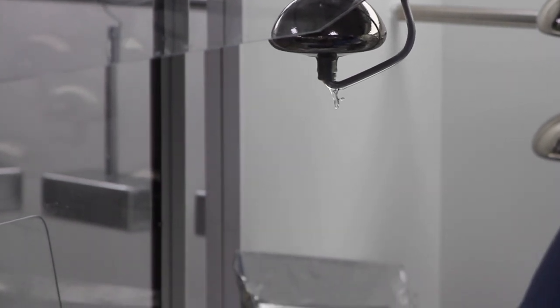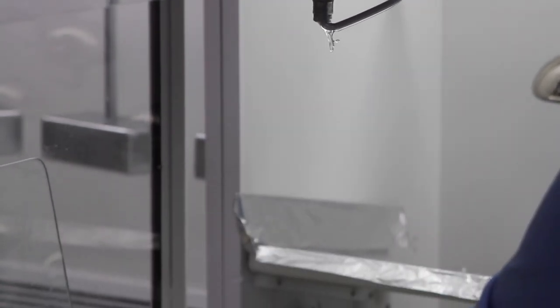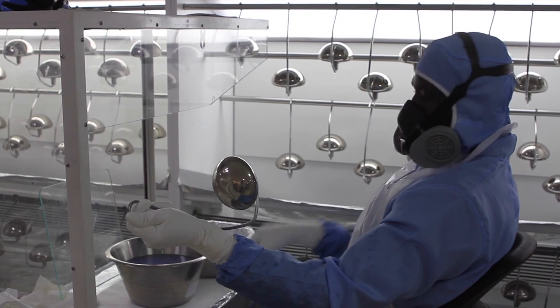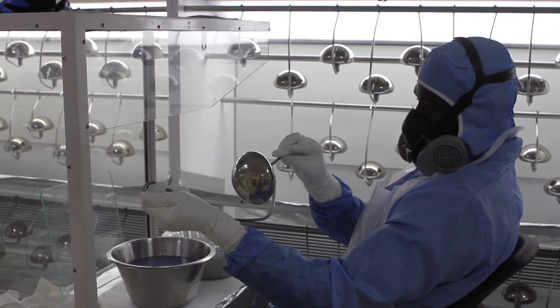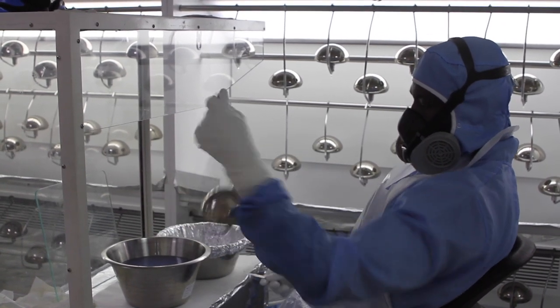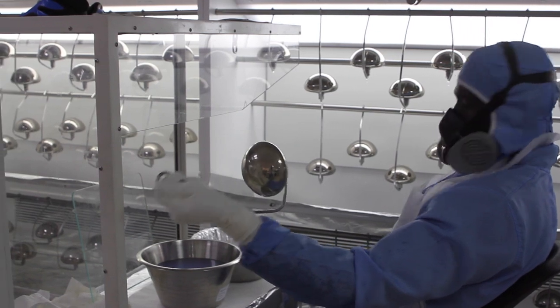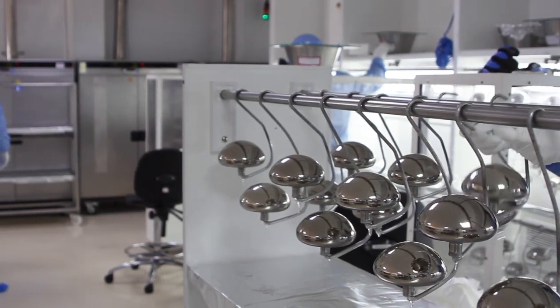As you can see here, the dippers are retrieving the dispersion from the previous step. They are dipping the mold with the final shape of the breast implant. They are dipping in several layers, between seven to eight layers.